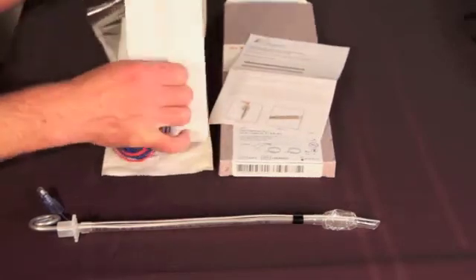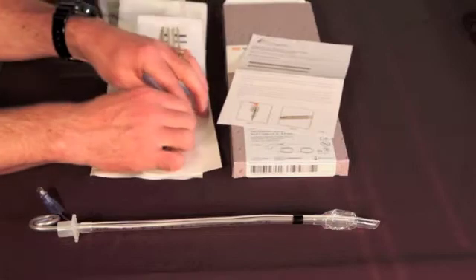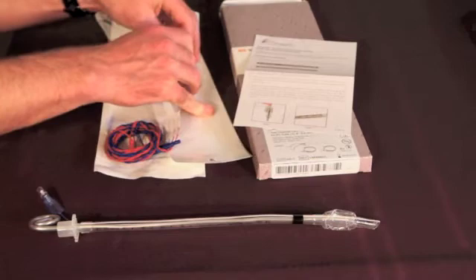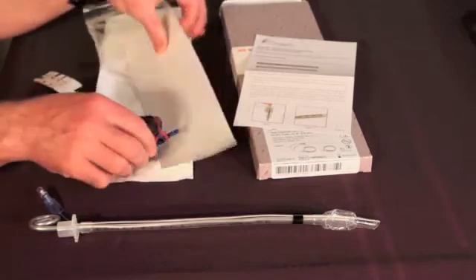The product comes in a plastic insert that helps hold it in position, so the next step after removing it from the package is removing it from this insert.